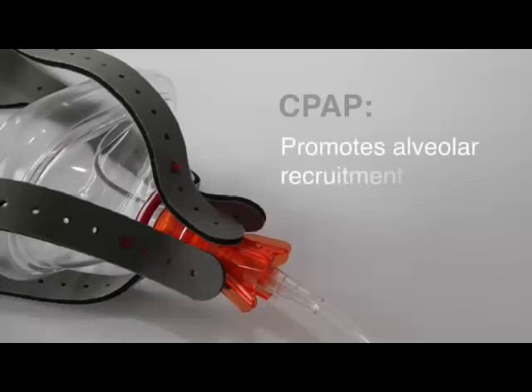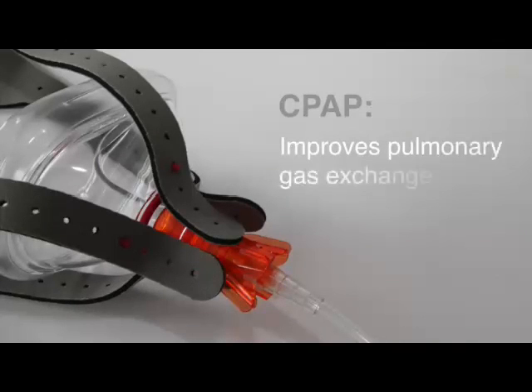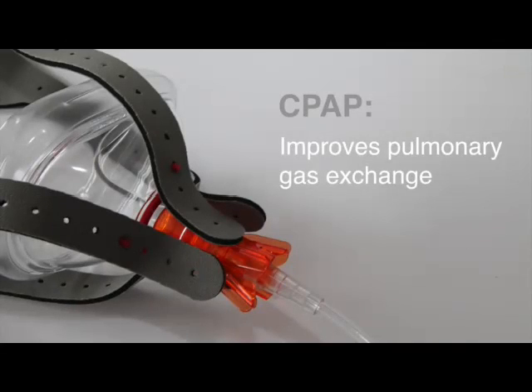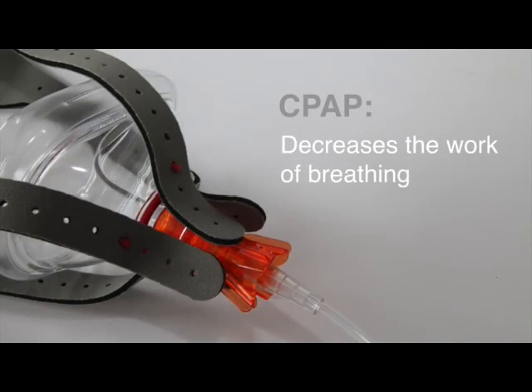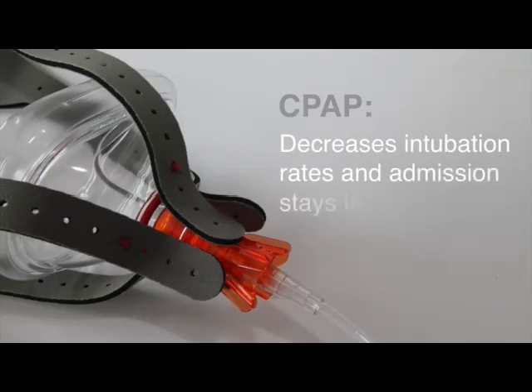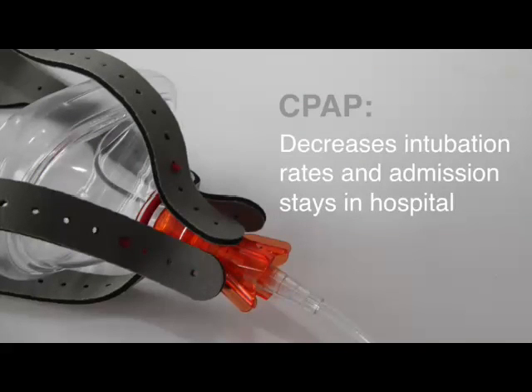CPAP promotes alveolar recruitment, improves pulmonary gas exchange, decreases the work of breathing, and is associated with decreased intubation rates and also reduced admission stays in hospital.